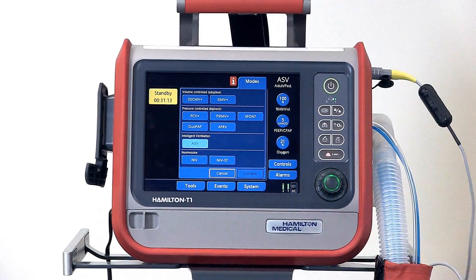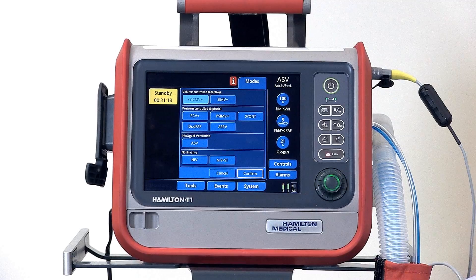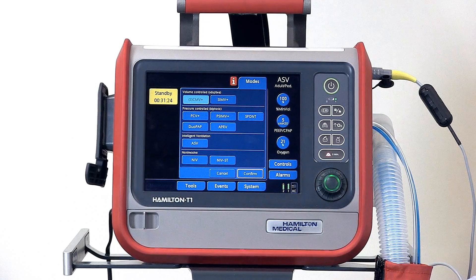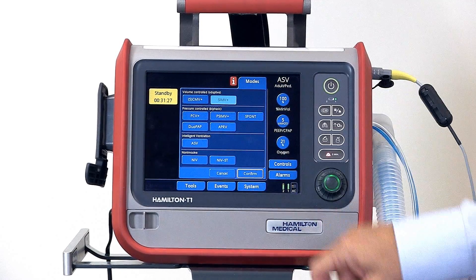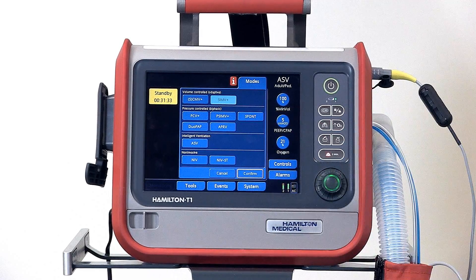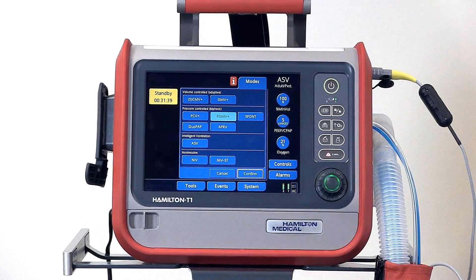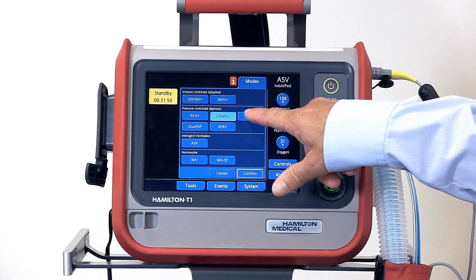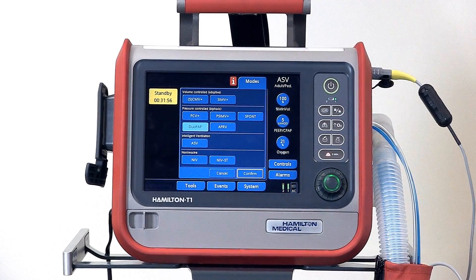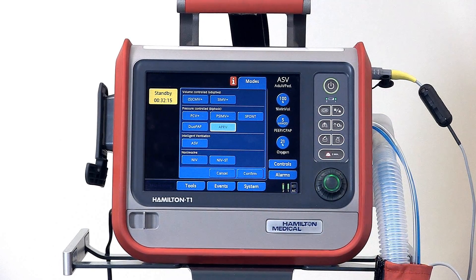Next, touch the modes tab to enter the modes menu and select your mode. In the top section we have volume controlled adaptive modes: first is synchronized controlled mandatory ventilation, next is synchronized intermittent mandatory ventilation. In the next section we have the pressure controlled biphasic modes, including pressure controlled ventilation, pressure controlled synchronized intermittent mandatory ventilation, spont mode for pressure support ventilation, dual PAP or dual positive airway pressure mode, and APRV, airway pressure release ventilation.